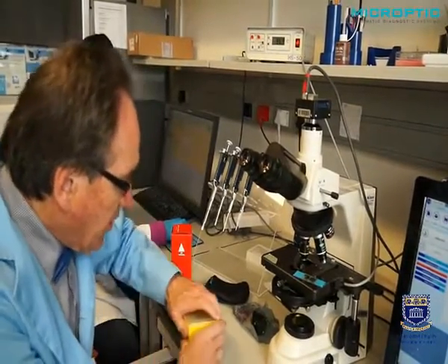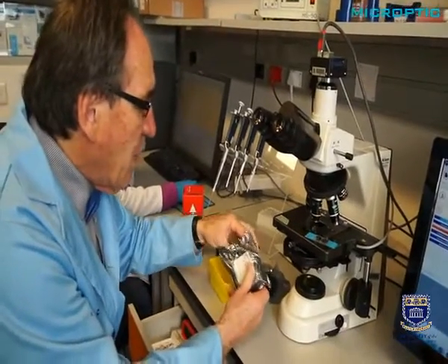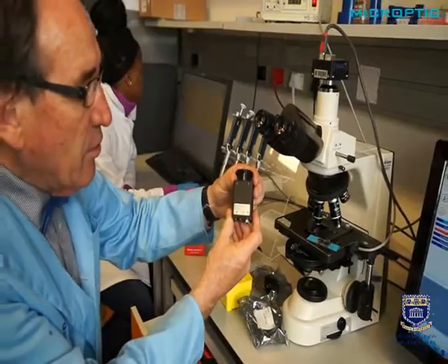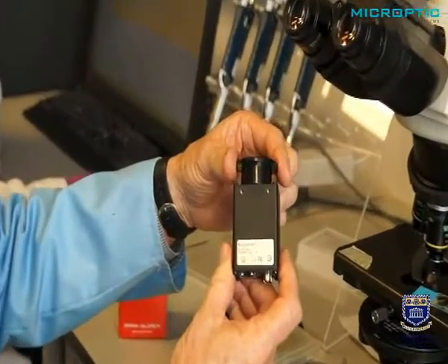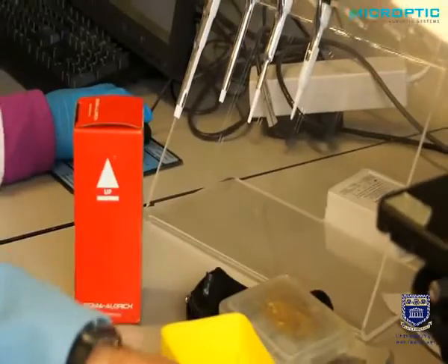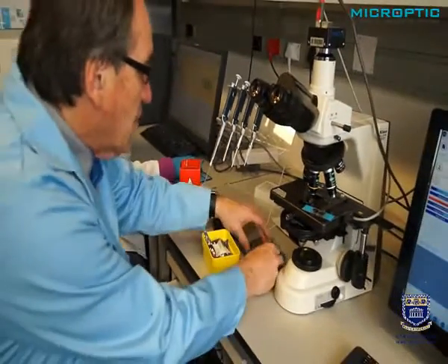We have this specific little camera which can do only black and white, but it is a Basler camera that can do 50 frames per second, and can even go up to 100 frames per second. In some instances, in some species, this is required. In addition, there is a whole new range of Basler cameras.